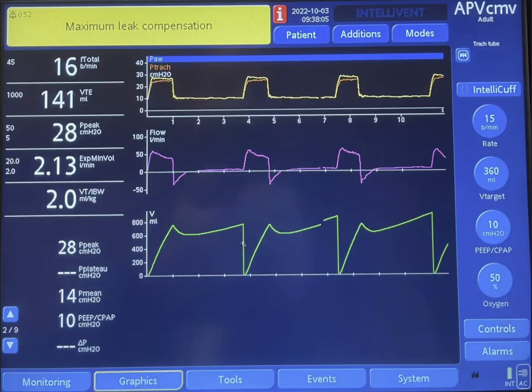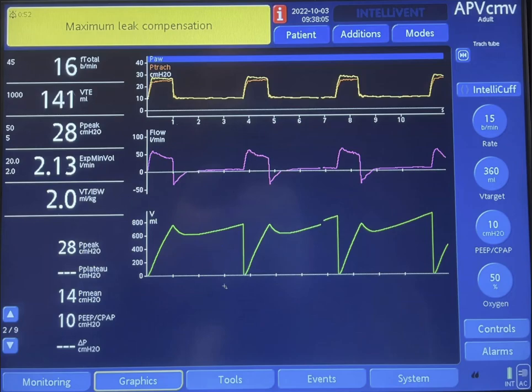There is no air to exhale — it's all gone. And this is not auto-PEEP, because you can see that the system has a very low time constant, meaning it is very compliant. The air is leaking and there is no limitation in expiratory flow — no prolonged expiration, no persistent flow at end of expiration. So this is all leaked air.